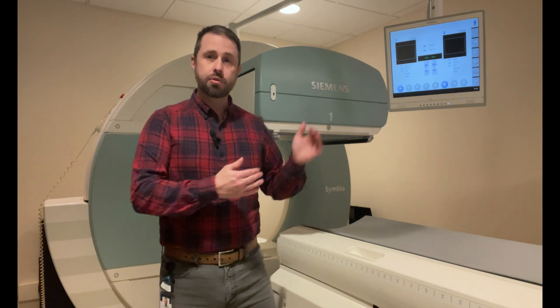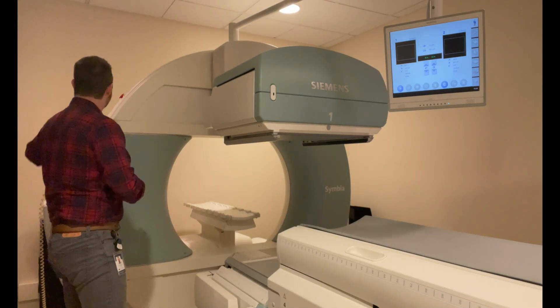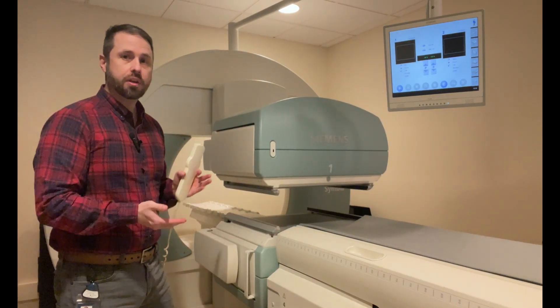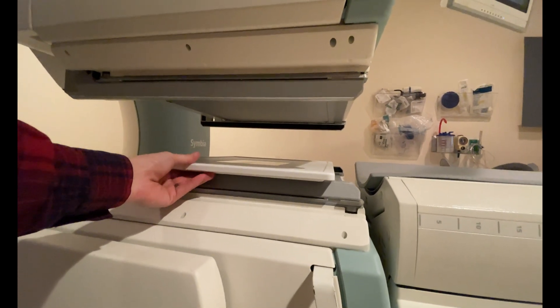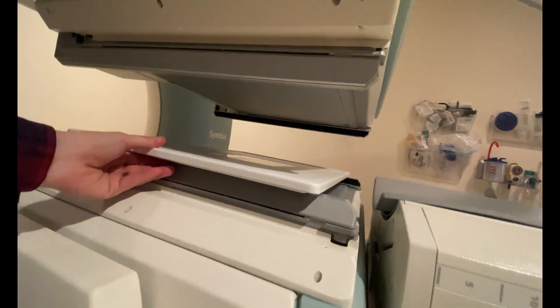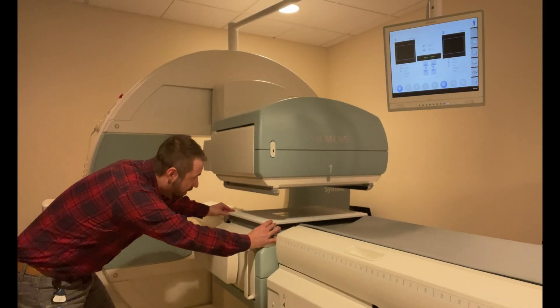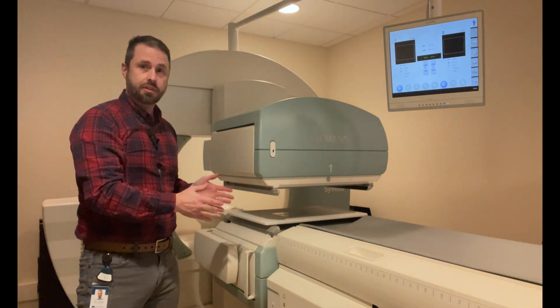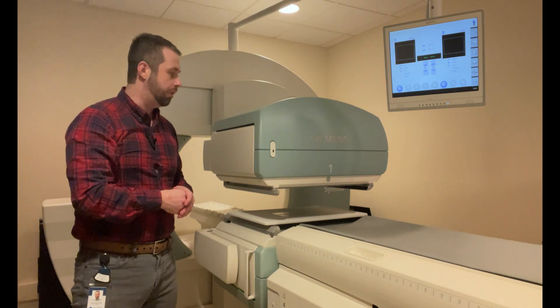The first thing that we want to do is we actually want to bring the detector heads in. Now that I have my detectors pulled all the way in, we can go ahead and place our sheet source on the detector. When you're positioning the sheet source, you want to make sure that the sheet actually covers the full surface of the detector so that we're creating a uniform flood field on our cameras.